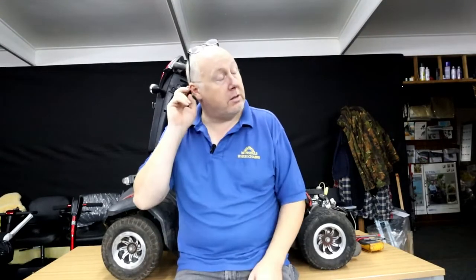It's a Drive Medical Envoy scooter. The customer was telling me it was kind of jerking and she wants new batteries. I said, let's have a look at it first before buying batteries, because jerking usually isn't a battery issue - customers think that's the only thing they can fix. Jerking is usually a motor, electric brake, or throttle pod problem.